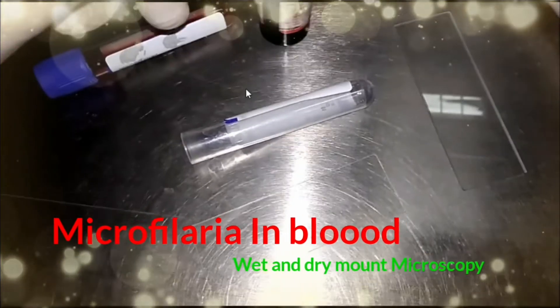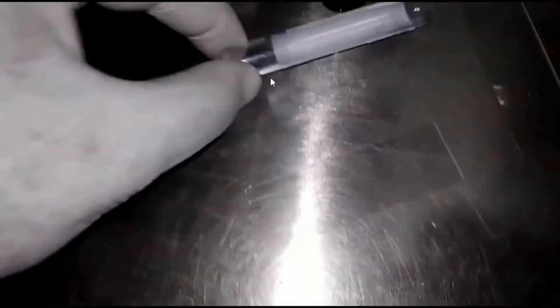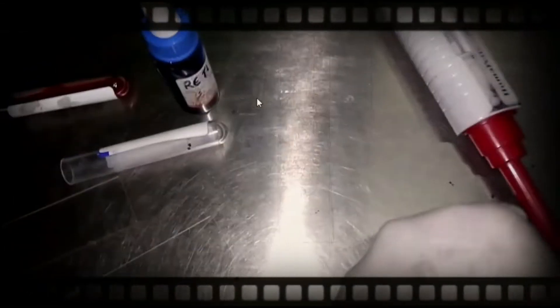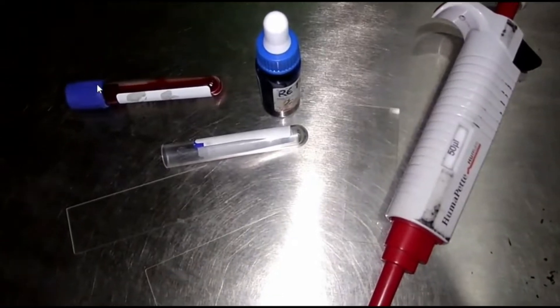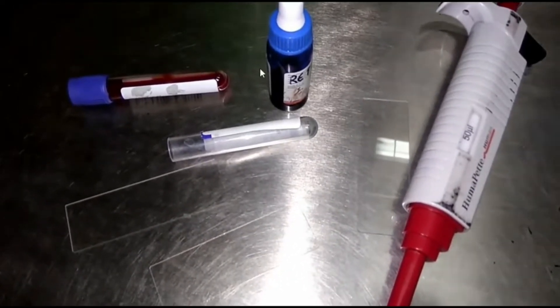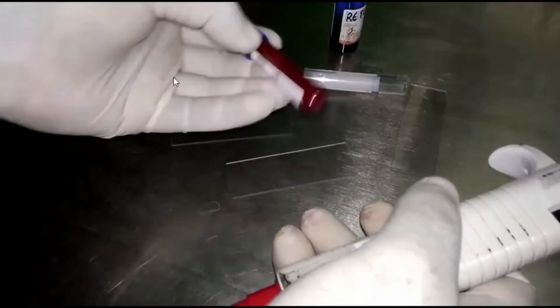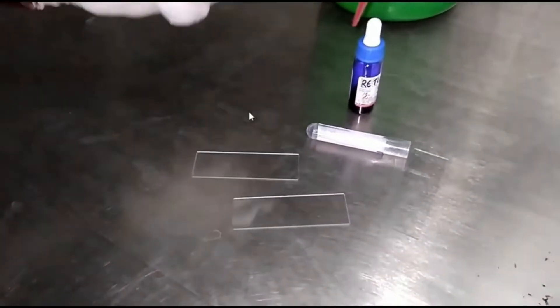Hi, let's observe microfilaria, live and dead, on the microscope. Requirements: here we have methylene blue, that is vital stain, the test sample, this one is EDTA blood, slides, test tube, micropipette, and microscope.